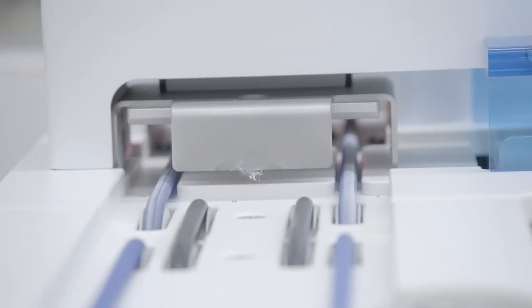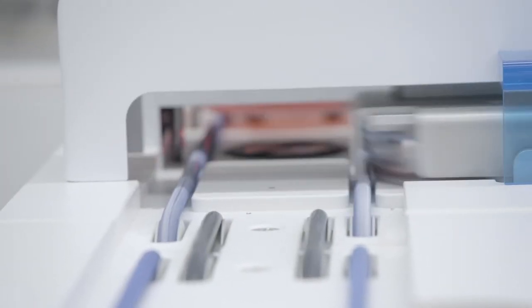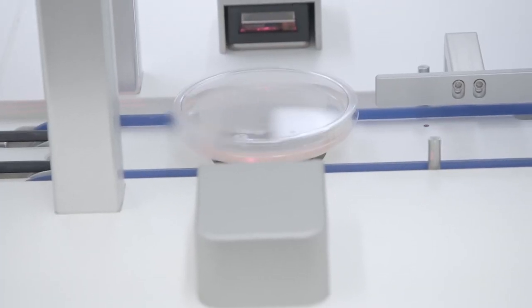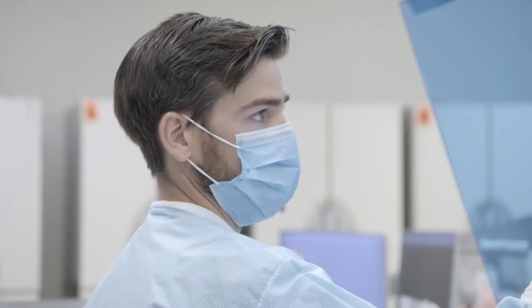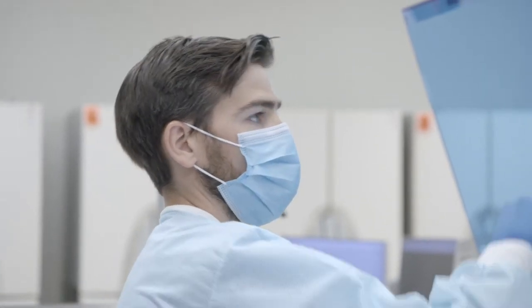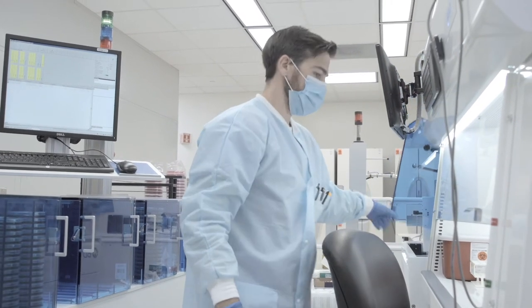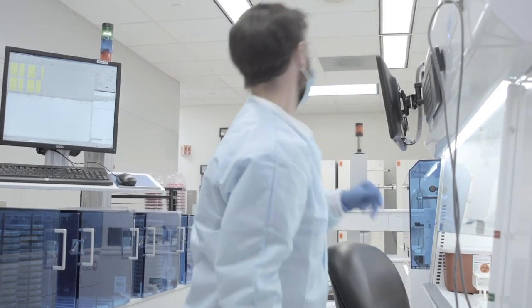Initially, most of that testing has been developed in our molecular diagnostics lab and then has really blossomed from just our initial in-house assay into a variety of different manufacturers platforms so that we can do a large volume of COVID-19 testing and be able to turn around those tests generally in 24 hours.